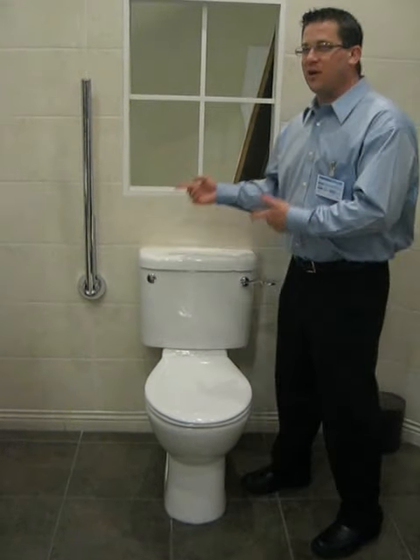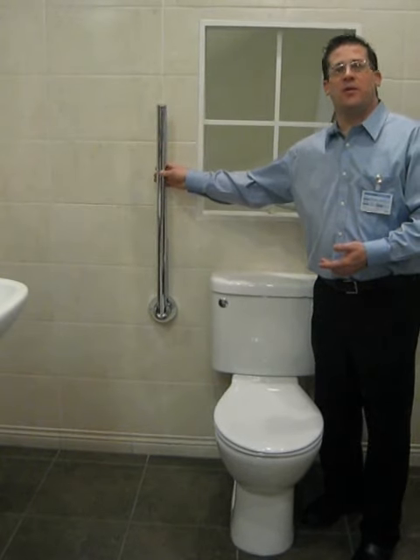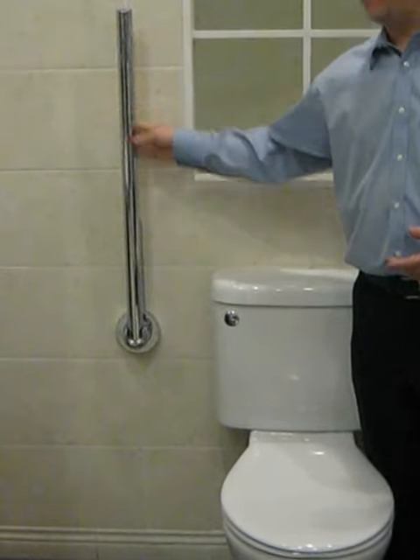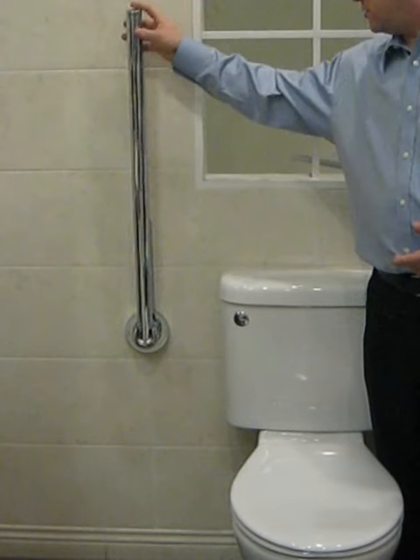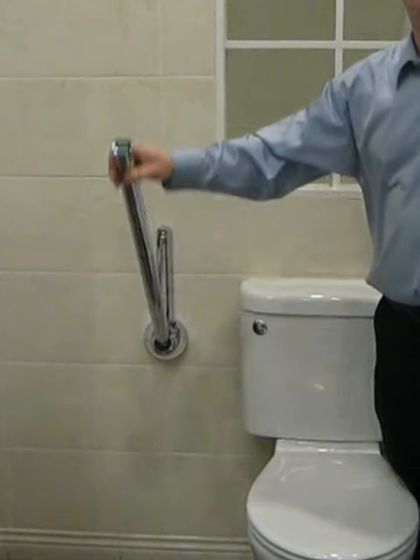Another great feature beside this toilet is what we commonly refer to as the PT rail, or flip-up grab rail, and it's designed in a very aesthetically pleasing way. A simple pull snaps it into its folder on the wall, folds down very easily, and gives the ability to have assistance getting on and off the toilet.